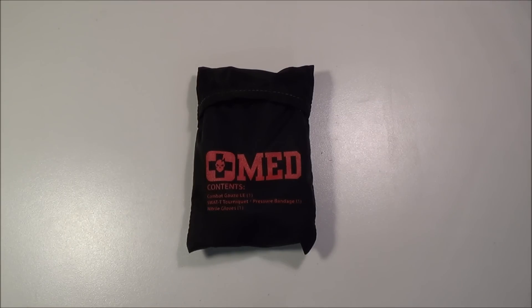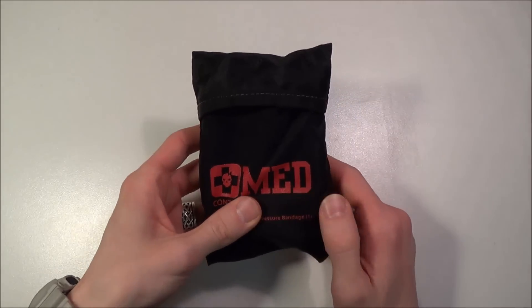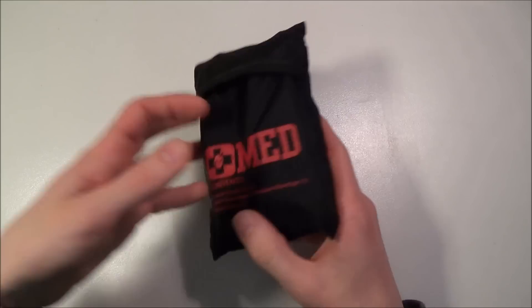You really don't want to use a tourniquet unless it's a severe situation — basically, you don't want to use a tourniquet unless you're going to lose the limb. Like if your hand gets severely injured, you're missing fingers, tendons are sticking out, and you're bleeding profusely, you'll want to use the tourniquet. Same goes for extreme arterial bleeding on an arm. It's one of those iffy subjects — people talk about tourniquets cutting off circulation and causing limb loss, others say it depends on how long you have it on. I have no personal experience with using a tourniquet, but what I know is that in the event you'd have to use something like this, you're going to worry about saving a life, not necessarily a limb.